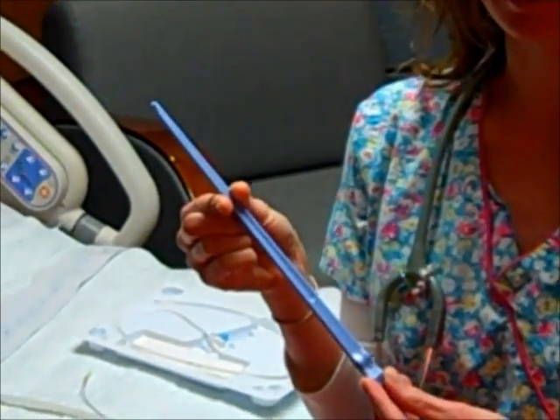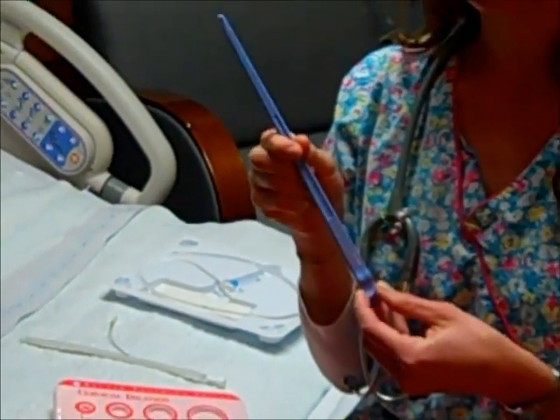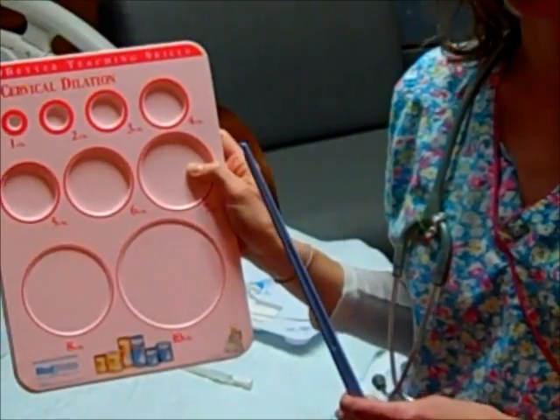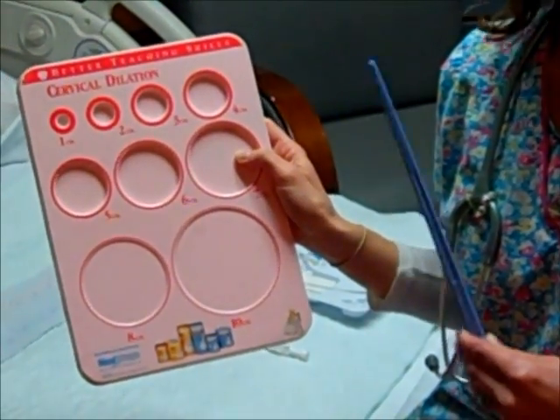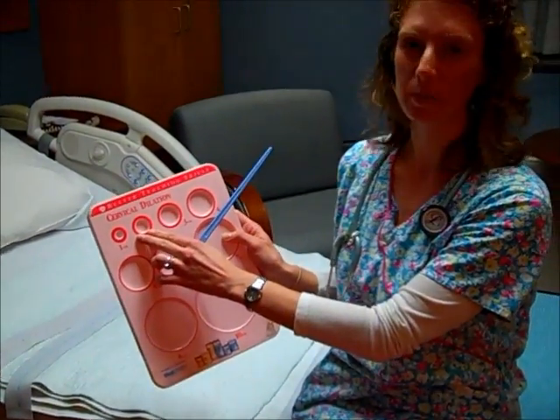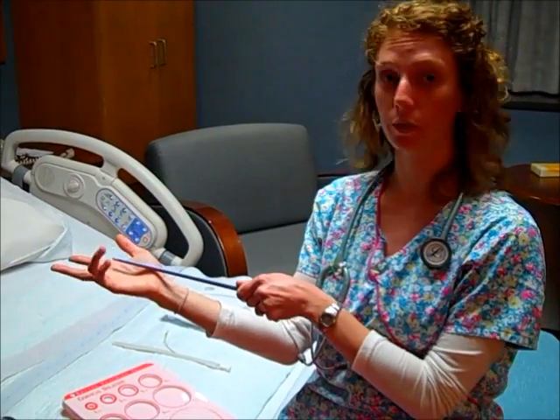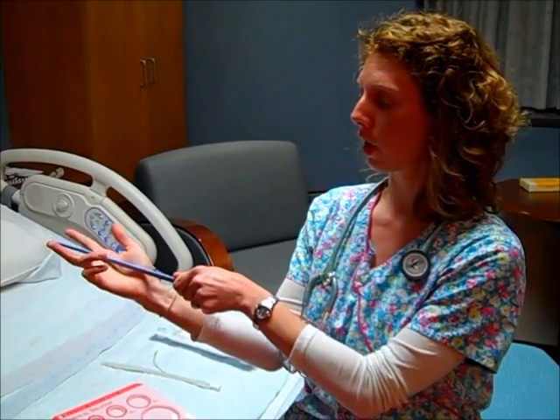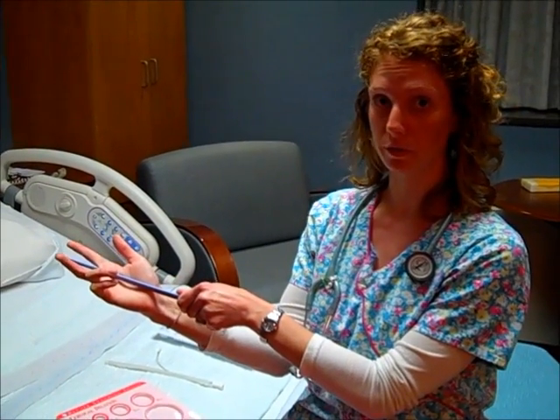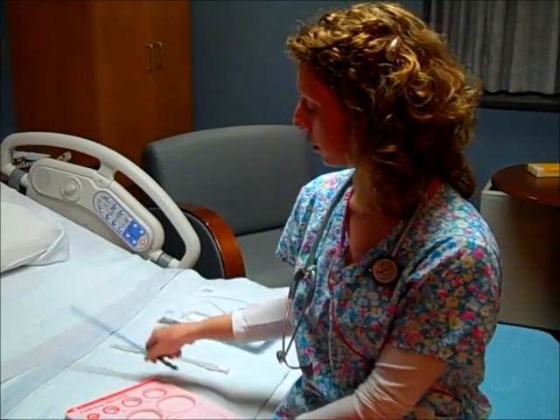So inside the cervix, you've got the amniotic sac with the fluid around the baby. The practitioner, if the patient is dilated and they want to speed labor up, or they may have another indication for using this, the patient has to probably be at least 2 centimeters or greater. They'll do a vaginal exam, find the cervix, and then they will, and this is only done by a doctor or midwife, they'll go in with the amnio hook and rupture the fluids. Okay, so this is an amnio hook. That's one tool you may see commonly used.